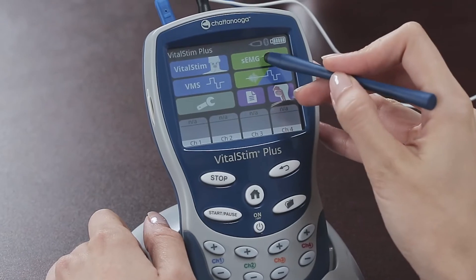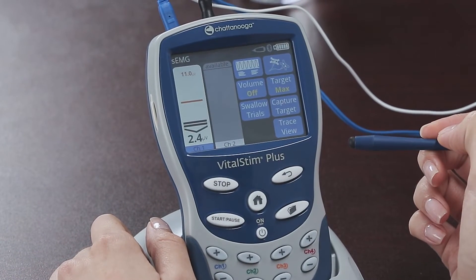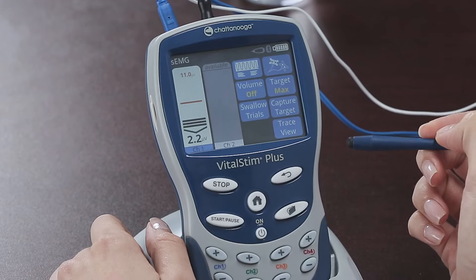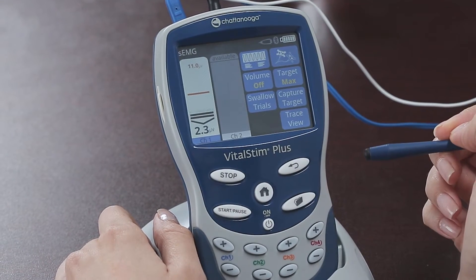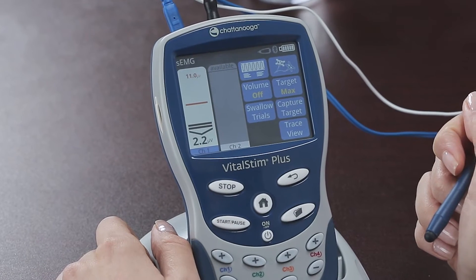Now let's explore surface EMG biofeedback. Pressing the green surface EMG button brings up this screen. Let's start by turning the volume off. Besides the description and sample electrode placements at the top, the key parameters to adjust are the target and the number of swallows to strive for — the swallow trials.